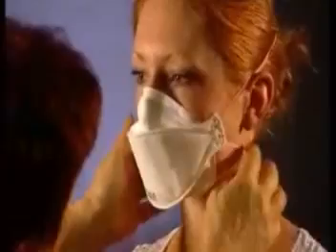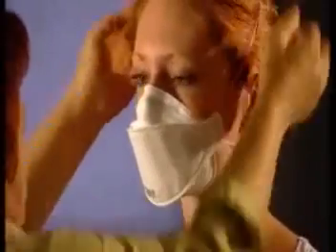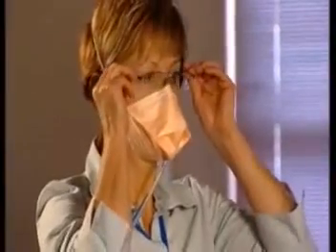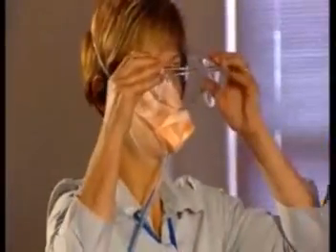Regardless of the method used, you can increase the chances of a successful fit-test if the person being tested has had previous experience with using a disposable P2 or N95 mask. However, the lack of previous experience should not be a deterrent to performing a fit-test. The fit-tester should always use the fit-testing time to reinforce correct procedure for fitting and removing a mask. Protective eyewear can affect the seal and fit of the mask, so protective eyewear should be worn when fit-tests are performed to ensure the protection provided by the mask is not compromised.